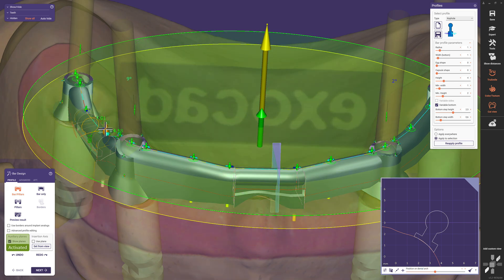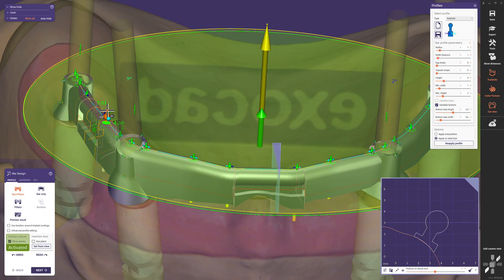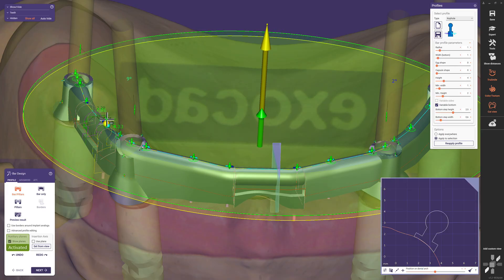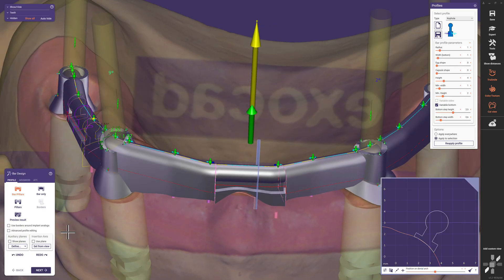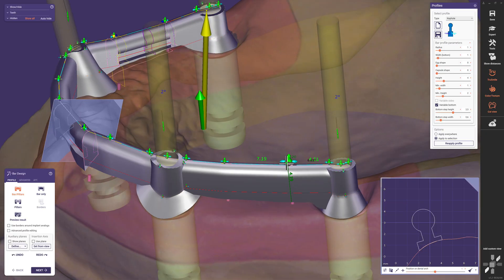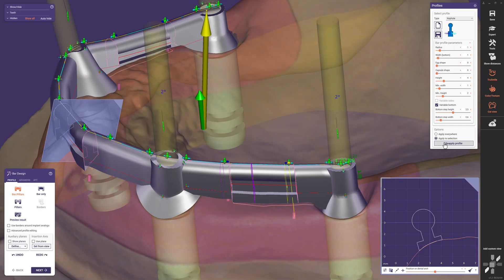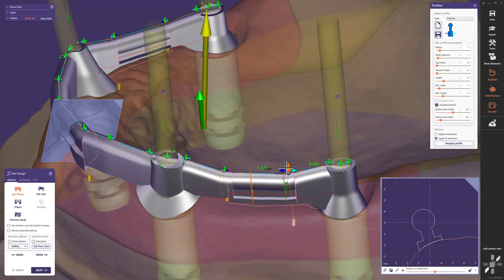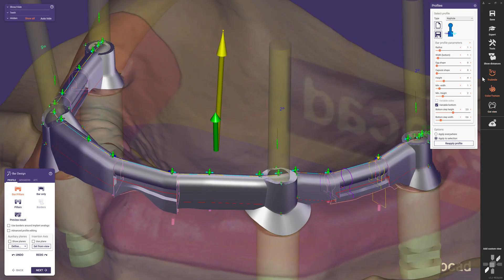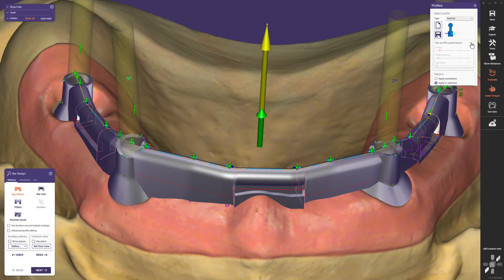Let's apply two more Preci-Horix by selecting the control point, marking the arrow as before, then clicking 'Reapply profile'. The horizontal attachment is now also moving in parallel. This technique allows us to lower several sections individually, saving space but also keeping all horizontal attachments in parallel to each other — which is important when inserting the prosthesis later.